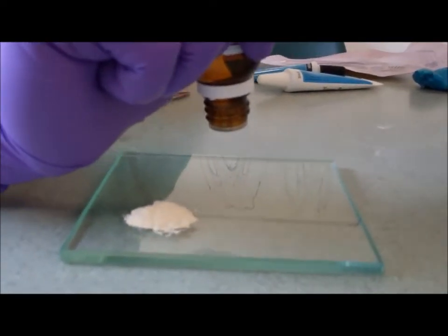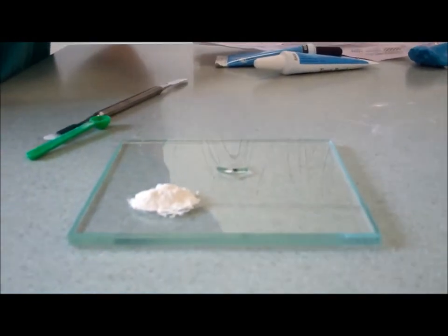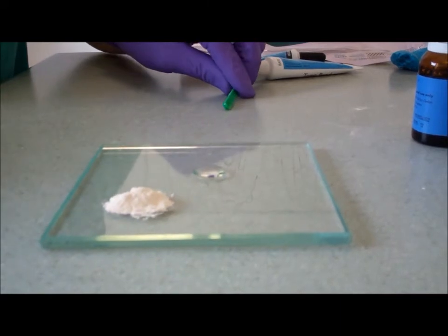In order to get the liquid out, you need to wrap your hand around the bottle and turn it properly upside down, and the heat of your hand will allow the liquid to drip out. So I've used four drops there.